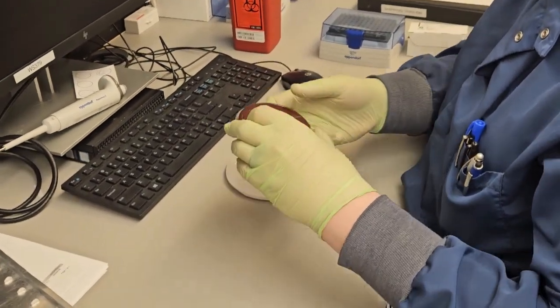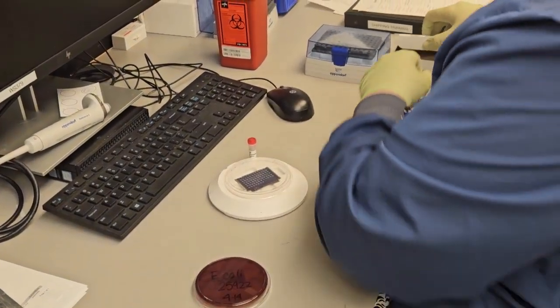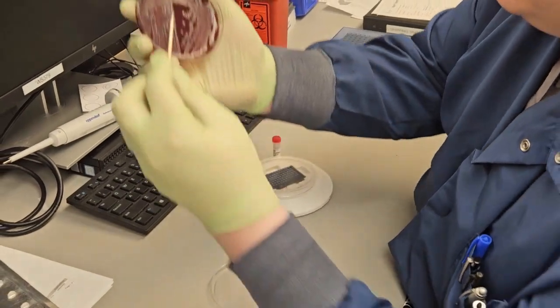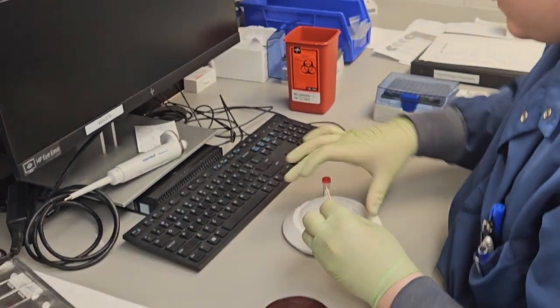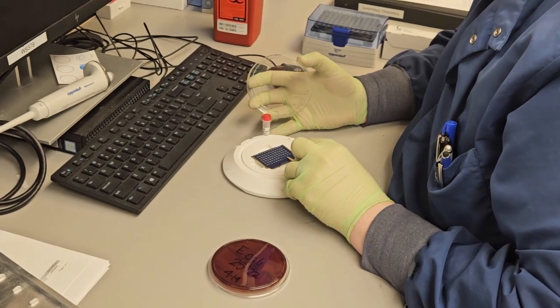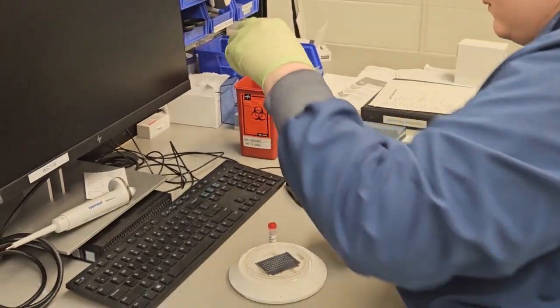Now that we know how to use the MALDI, I'd like to reinforce how to apply organisms to the target plate, because at this step, we face the most crucial point in the process. If we fail to make this happen properly, the identification will fail. So I take just the right amount of bacteria, not too much and not too little, and apply it to the target. This way we have a layer that is not too thick or too thin, so that we may have a properly confident identification.